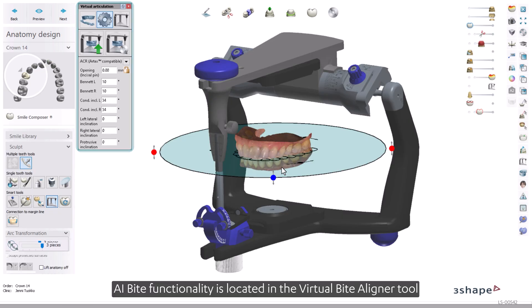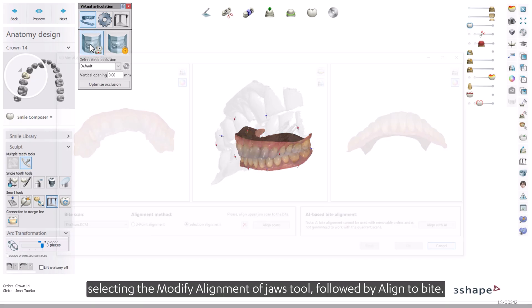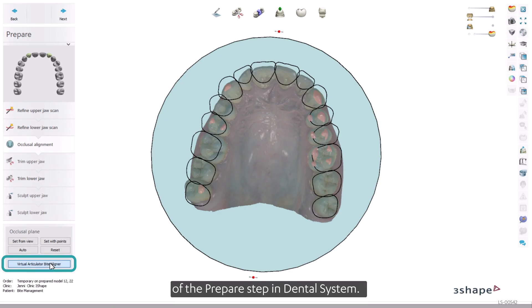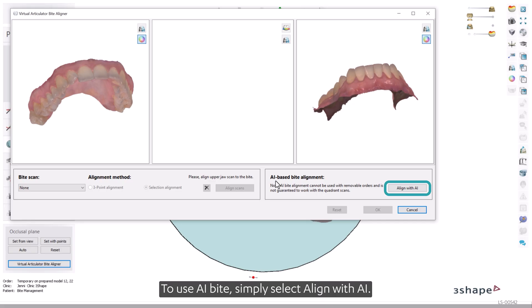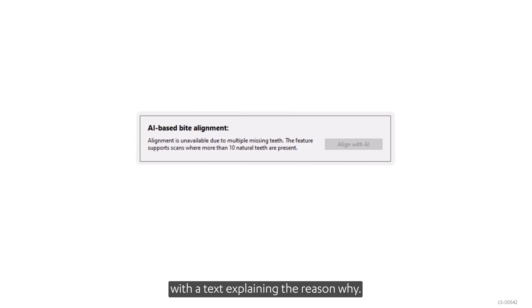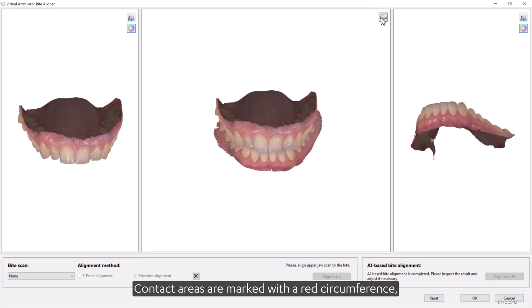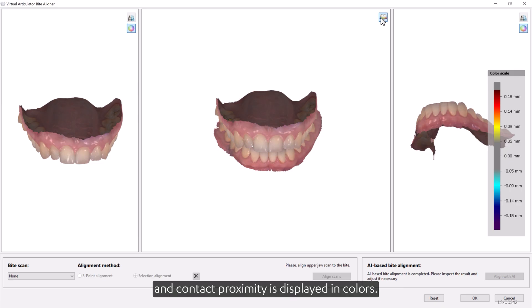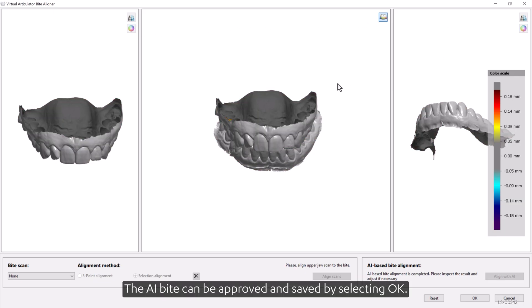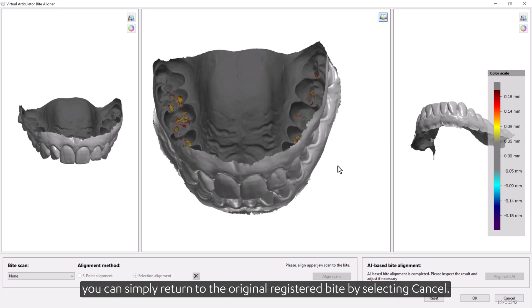The AI-Bite functionality is located in the Virtual Bite Aligner tool in the Virtual Articulator. It can be accessed by opening the Virtual Articulator, selecting the Modify Alignment of Jaws tool, followed by Align to Bite. You can also open it through the Occlusal Alignment sub-step of the Prepare step. To use AI-Bite, simply select Align with AI. If AI-Bite is not available for the scan in question, the Align with AI button is disabled, accompanied by a text explaining the reason. You can inspect the AI-Bite by using the distance map tool in the middle window. Contact areas are marked with a red circumference and contact proximity is displayed in colors. The AI-Bite can be approved and saved by selecting OK. If you are not satisfied, you can return to the original registered bite by selecting Cancel.